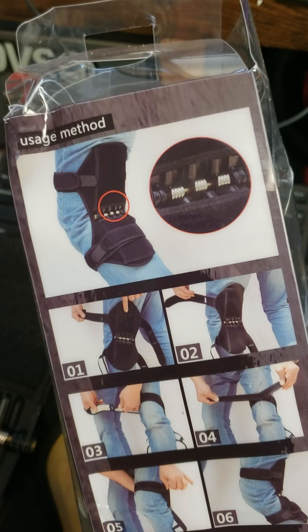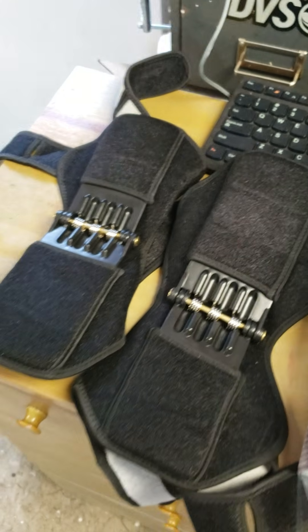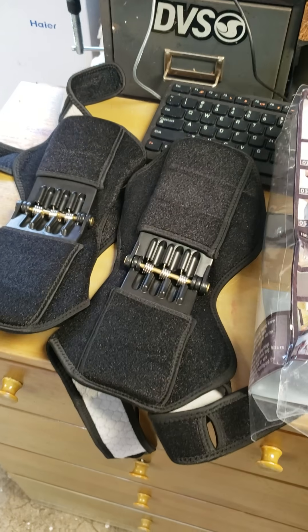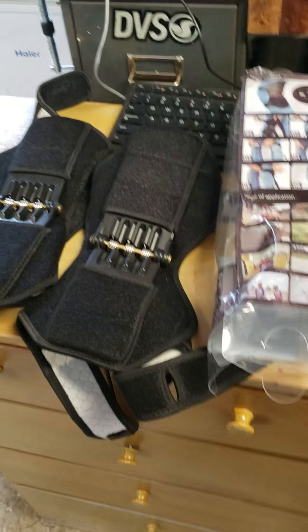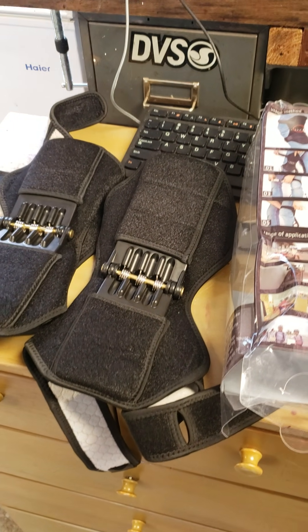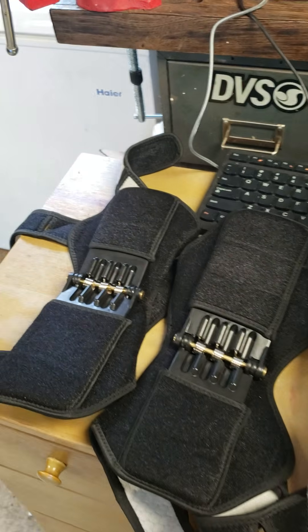It's not rocket science on how to put them on. But there's nothing on YouTube that you can find — at least not that I can find — to review these. There is a lot of stuff on YouTube, but it's all from the damn companies. They're putting their own reviews up there, which is total horseshit.